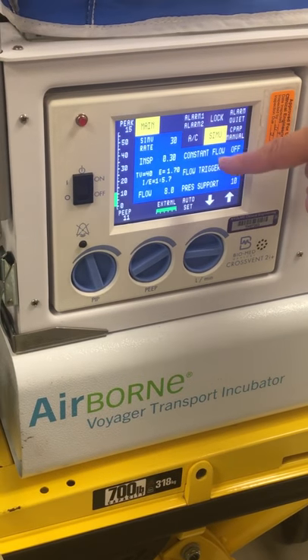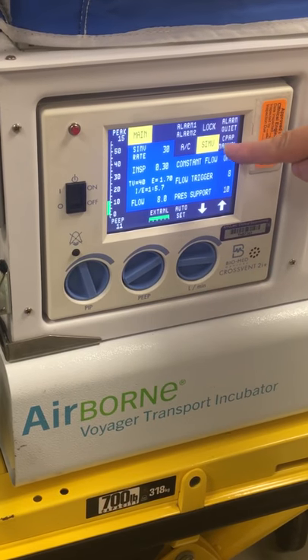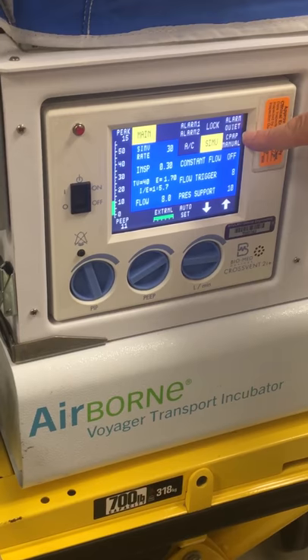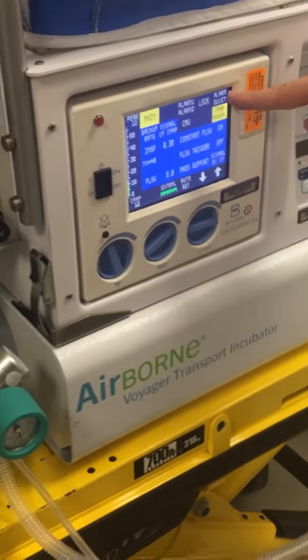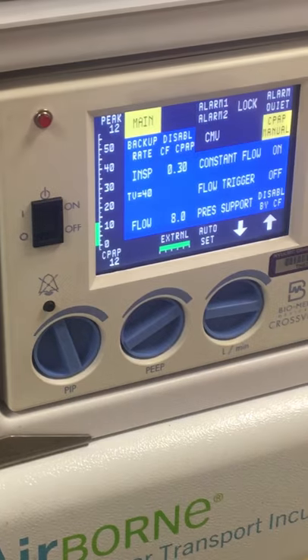This is the settings. Switching between modes: constant flow off or on. SIMV for invasive ventilation; CPAP manual with constant flow on for non-invasive ventilation. This is our alarm silence button, and this is where we find our alarms — main menu.